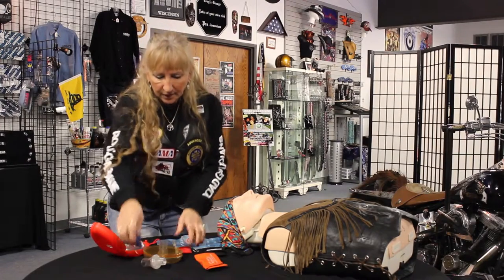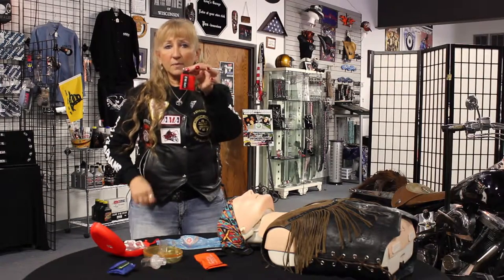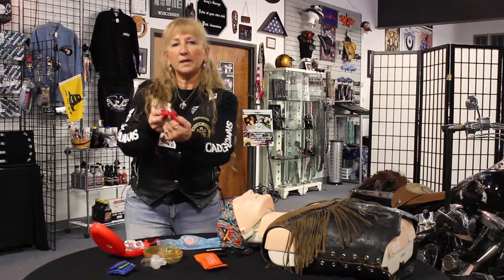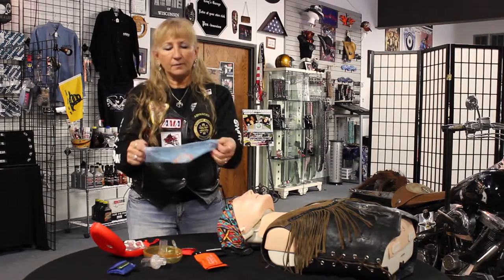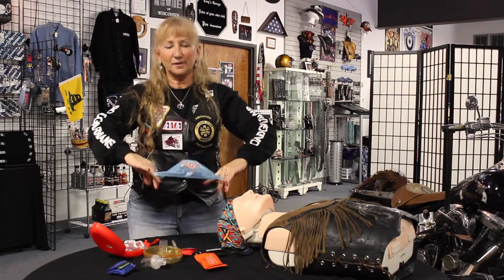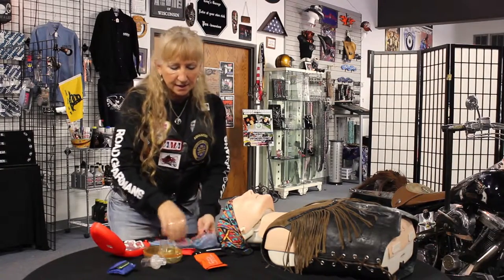We then have another one that's very handy to use, and is one that I carry on my keychain. This one is called the rescue key. When you take this out of this little case, you want to squeeze to pop it out — it's much easier than trying to reach in with your fingers and pull it out. What you have is this style: it has elastic that goes around the person's ears and is placed on the person like that. Not on you, the rescuer — you put it on the other person. And it has a rubber dam that does a really good job of protecting you and keeping icky things behind it.